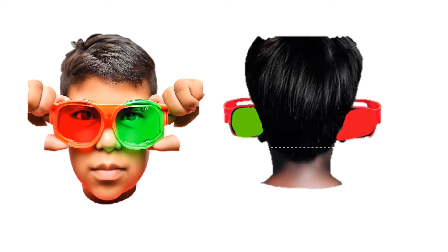Remember that the patient is wearing these red-green goggles, and throughout this video we are going to imagine as if we are standing behind the patient. So the patient's right side will be our right side and the patient's left will be our left-hand side.